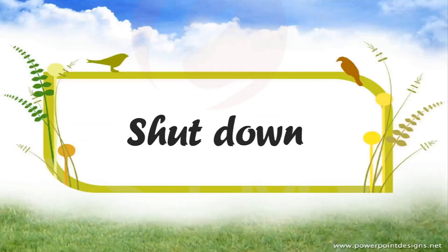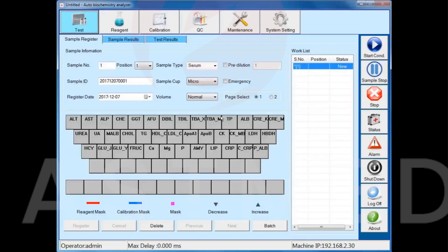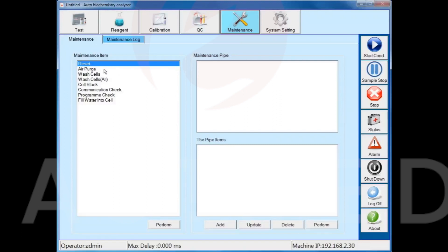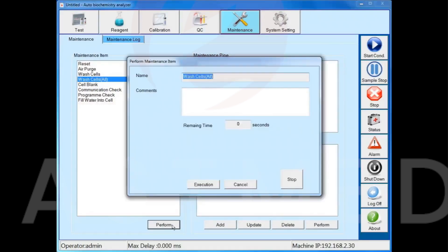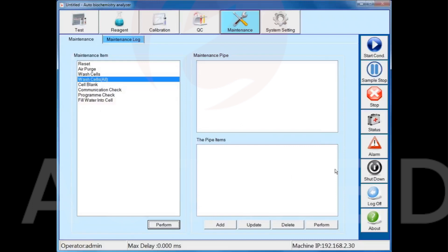Tenth part: shut down. Click to go to maintenance and execute the wash cells all function. The instrument will clean all the cuvettes, and meanwhile will wash the liquid channel using distilled water. Clean the machine every day after use to achieve the purpose of daily maintenance and extend the life of cuvettes and pipes.